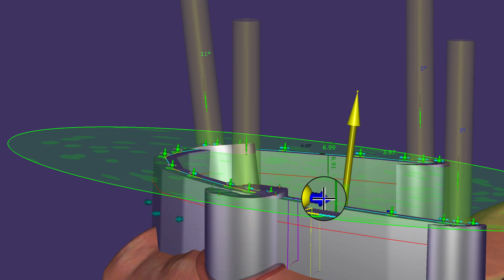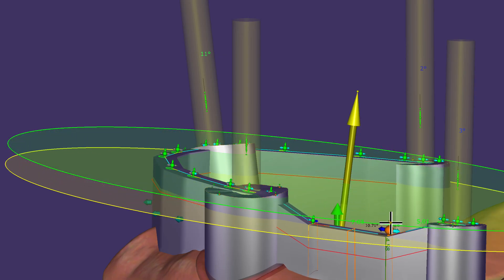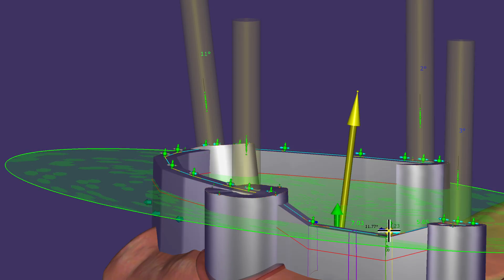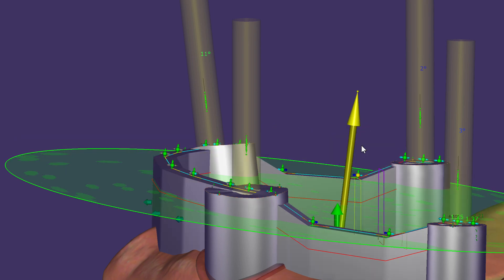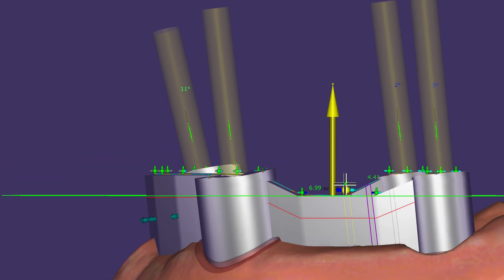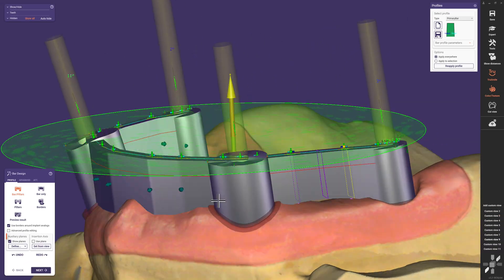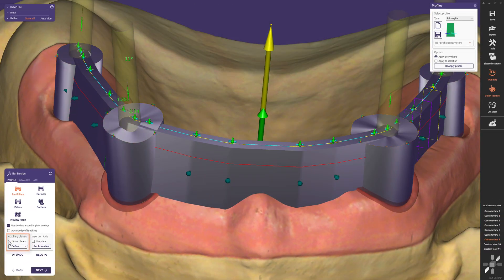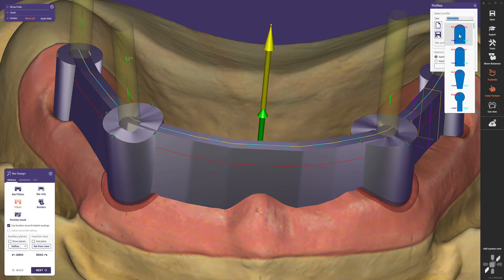You can evenly space horizontal attachments by clicking the light blue arrow to move the facing part of the segment parallel to the auxiliary plane. Another double click updates the reference plane so you can easily align another horizontal attachment using the same parallel alignment and height. Now the bar segments are leveled neatly. We can hide the planes for a better overview, and also hide the bar control points by clicking on the pillar icon, so only the control points we want to edit are shown. Let's choose another bar profile and have a closer look at our pillars.